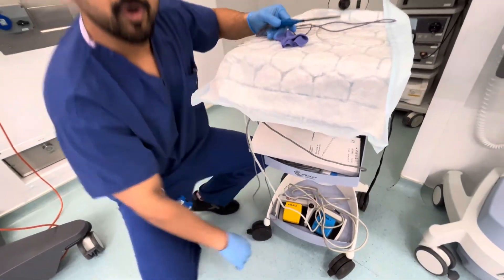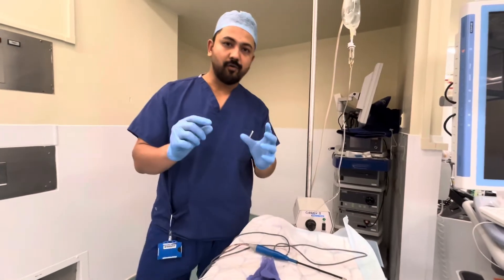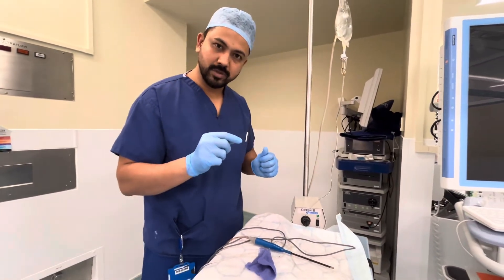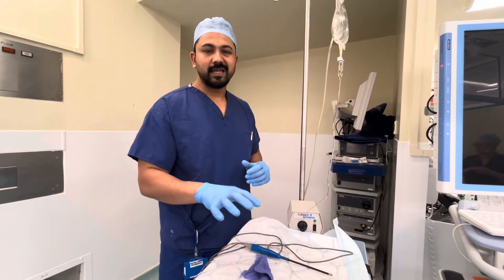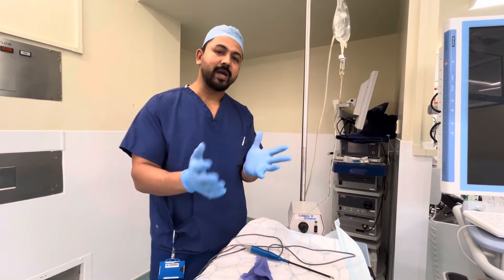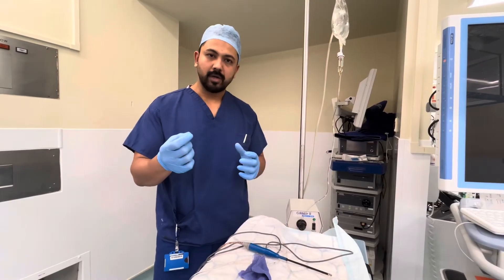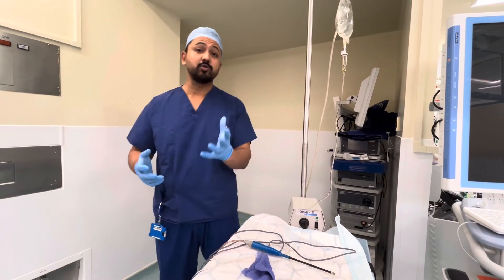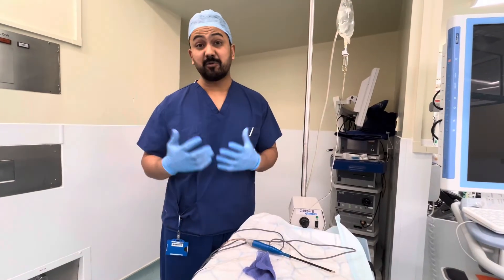There are different types of wands. There is a needle as well which we can use. This current basically produces low heat — around 60 to 80 degrees. In bipolar, the heat is a lot — maybe at least 200 degrees Celsius and it can vary up to 600.